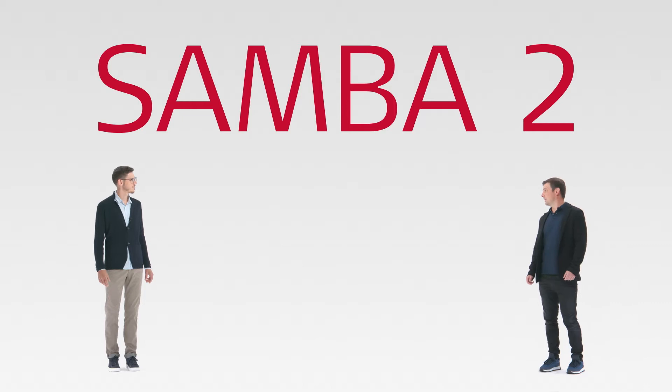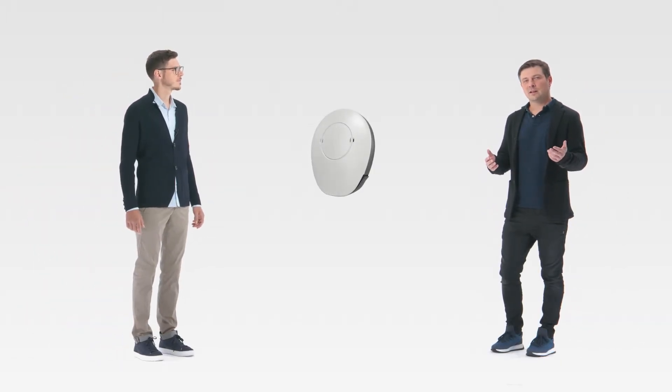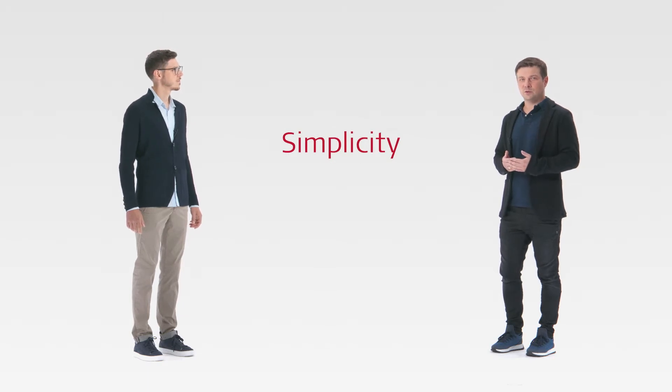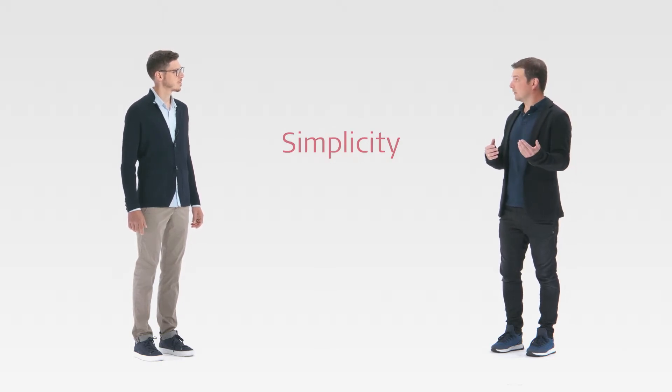Hi Lukas, I'm happy to be here. Hi Alex, could you explain more about the philosophy behind Samba2? Sure, let's have a closer look. With Samba2 we have created an audio processor that our users can just put in in the morning and forget about it until the evening. Simplicity is at the heart of Samba2, which combines intelligent hearing technology with a super intuitive handling.